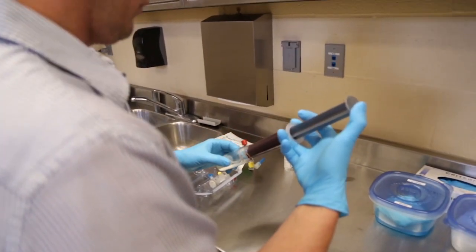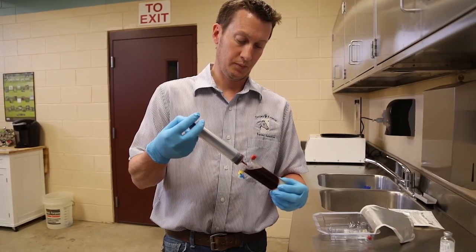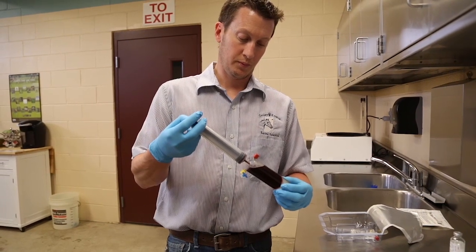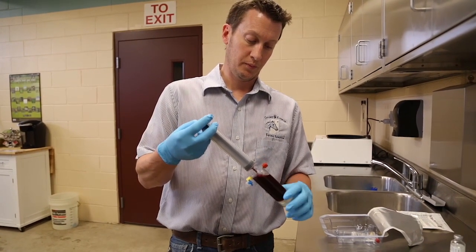Slowly add the blood at a rate of 1 ml per second. Be sure to hold the red port upward at an angle to avoid blood running over the blue top vent.